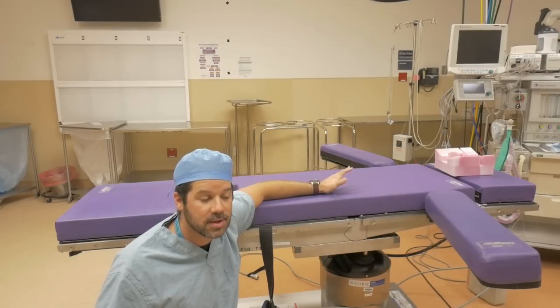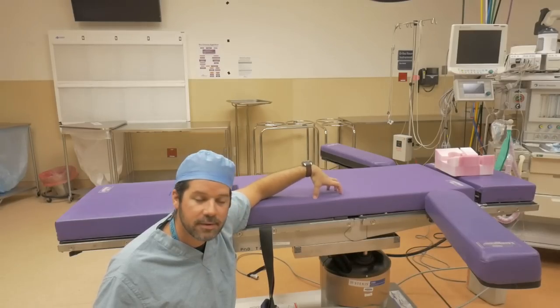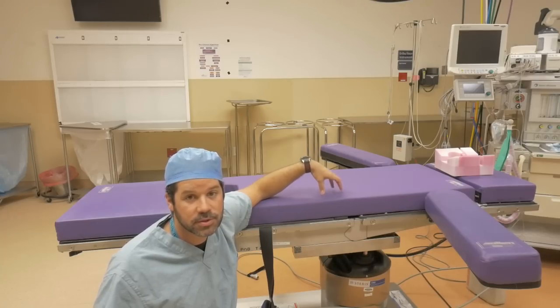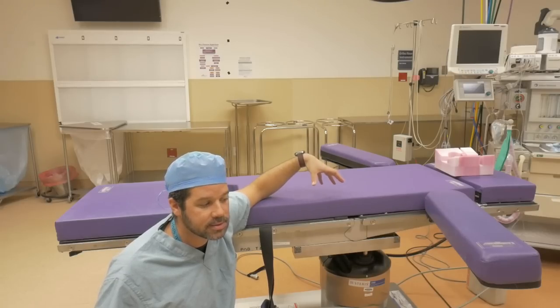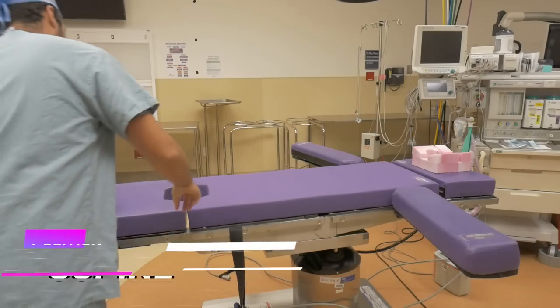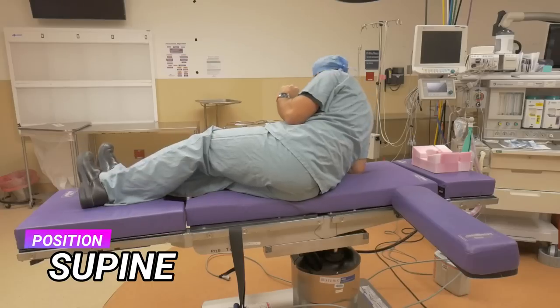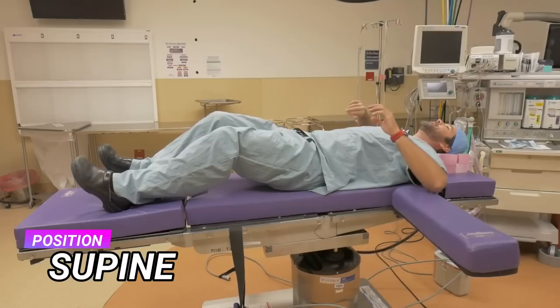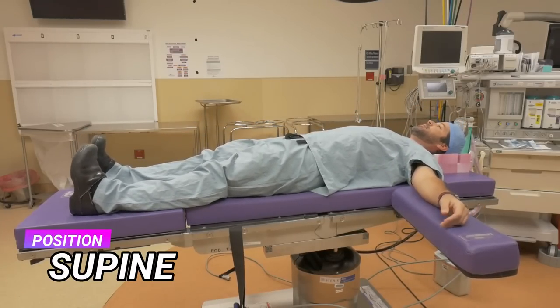To start things off, we're going to go over different positions on this table. First and foremost, the most common position you're going to see in the operating room is supine. The supine position is the body's most common way to lie — you're just lying on your back. I've never actually sat on the OR table before; this is actually pretty comfortable.